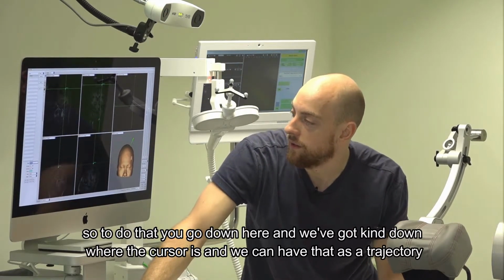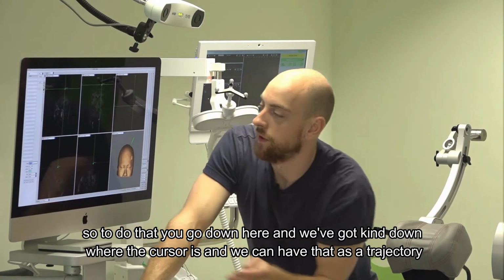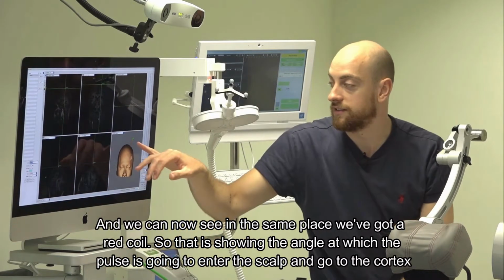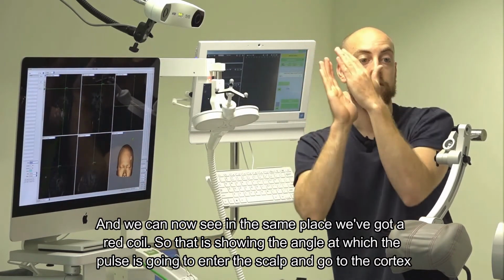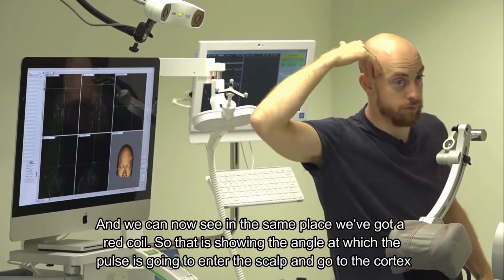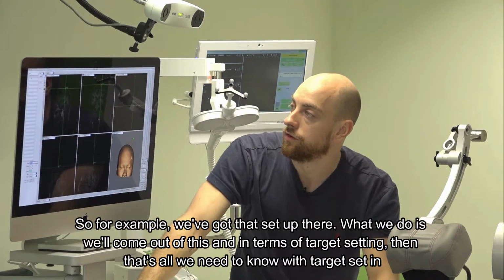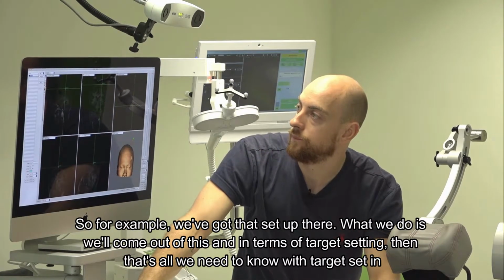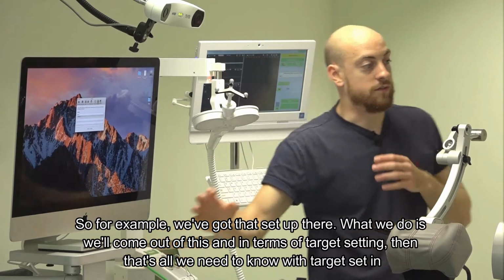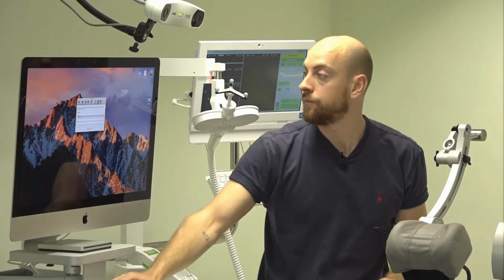To do that, you go down here, where the cursor is, and we can have that as a trajectory. We can now see in the same place we've got a red coil. That is showing the angle at which the pulse is going to enter the scalp and go to the cortex. So for example, we've got that set up there. We come out of this, and that's all we need to know with target setting.